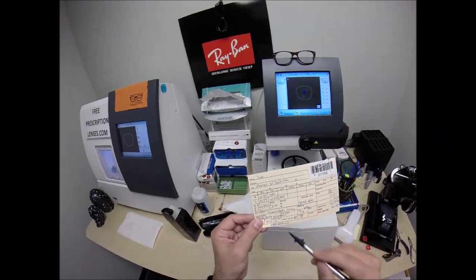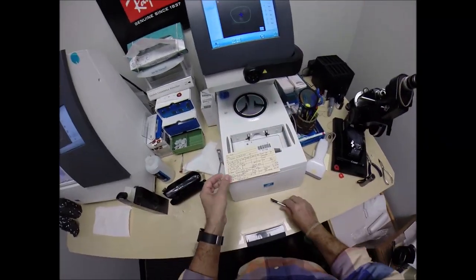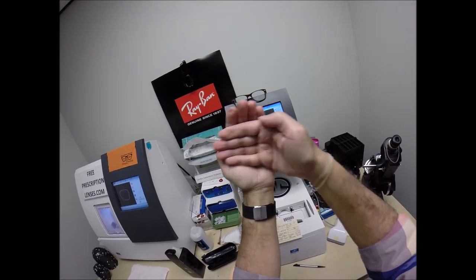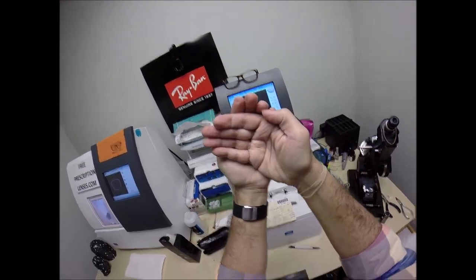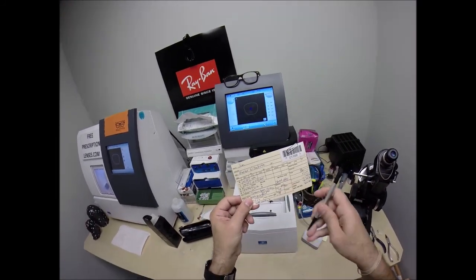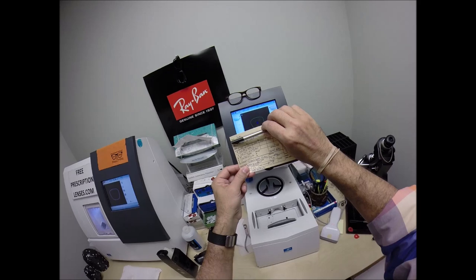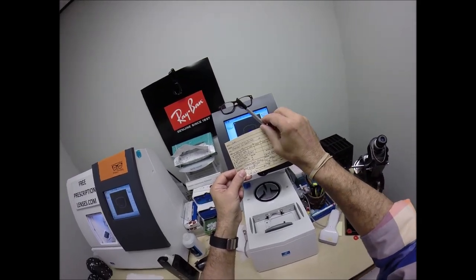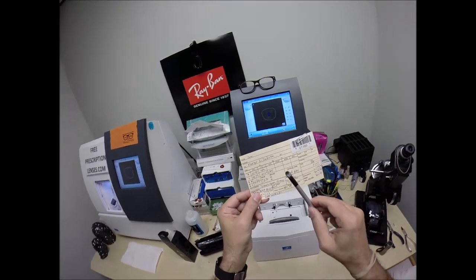You have two curves on your eye. One curve, a spherical curve going this way, and an astigmatic curve going this way. And it's how you line those two curves up to make everything nice and crisp. We're going to turn that fine-tune knob to 65. A normal axis wheel, 0 to 90 to 180. We're going to turn that to about 65, just past the 45 meridian.